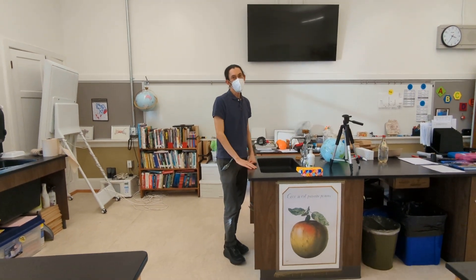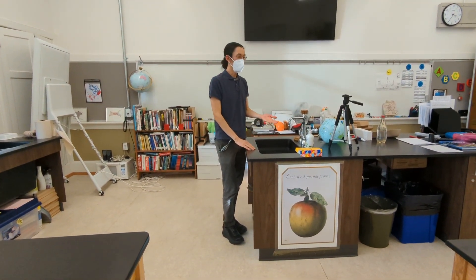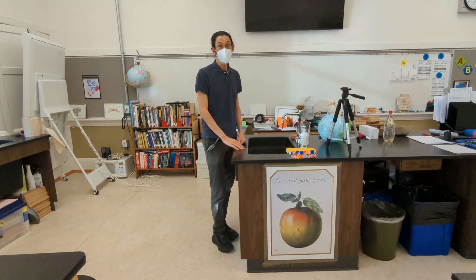Hi, this is Mick Ji, and I'm going to demonstrate how to do the on-go COVID-19 antigen self-test.